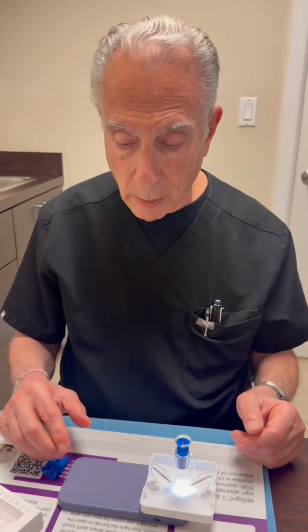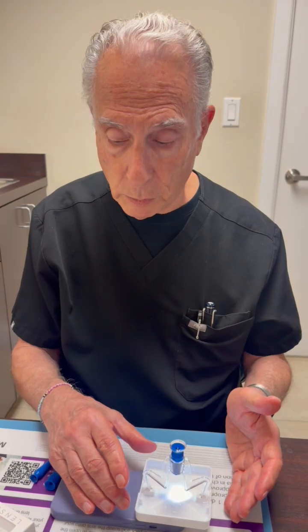Hi, I'm Dr. Boshnik. I'm happy to introduce a new technology that we're introducing to our practice called the Halo Pro by a company called LensBase.